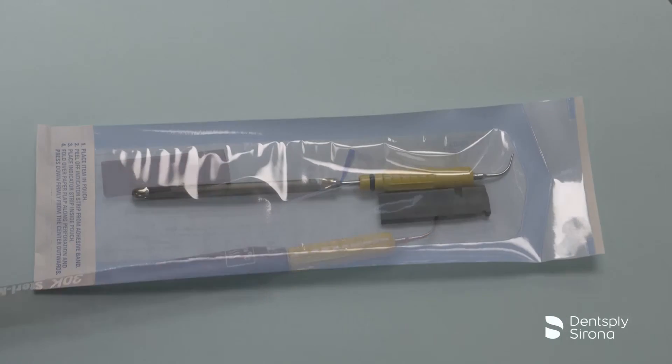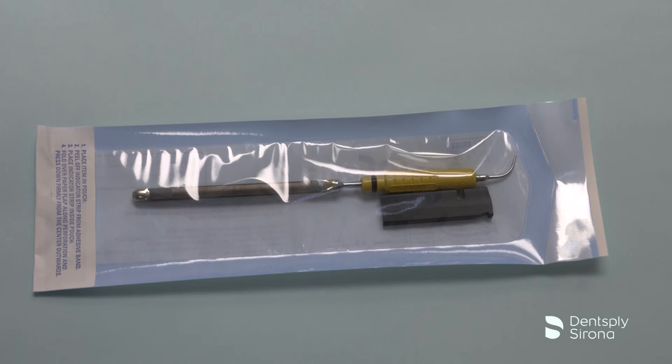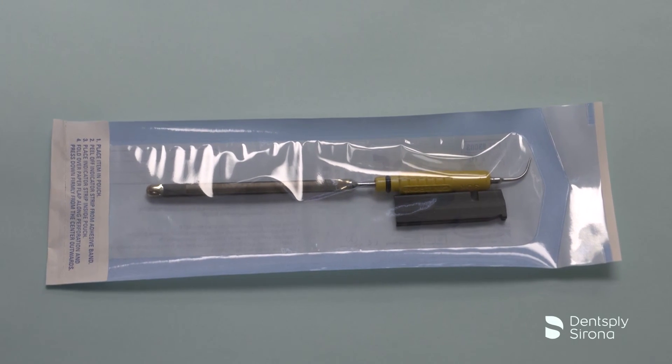Proceed with sterilization of the ultrasonic insert and soft tip wrench. It is recommended to always sterilize the insert and the wrench together.